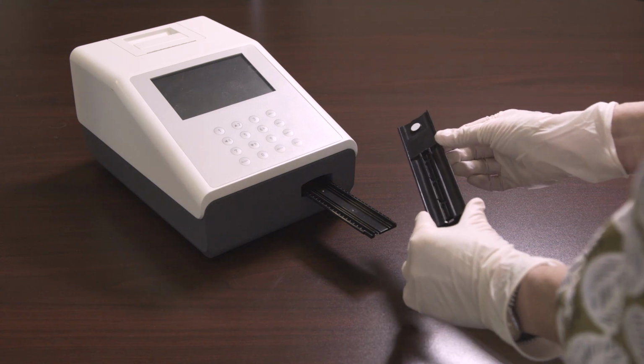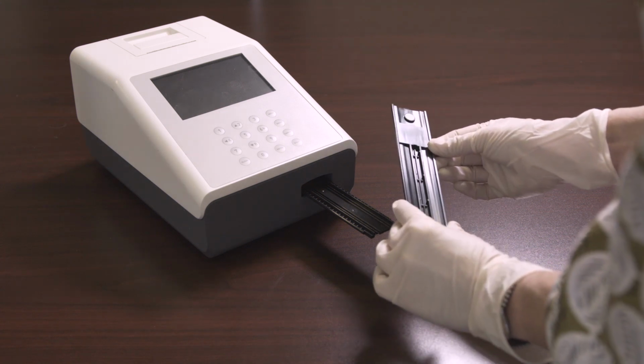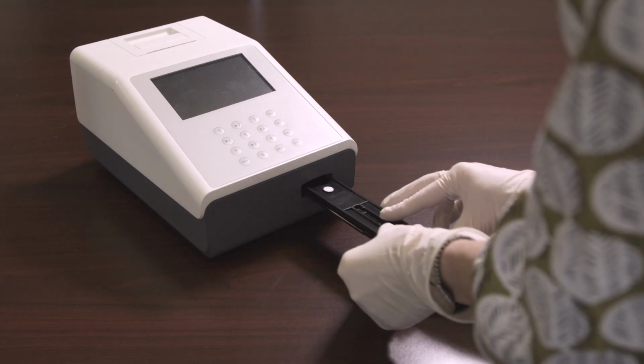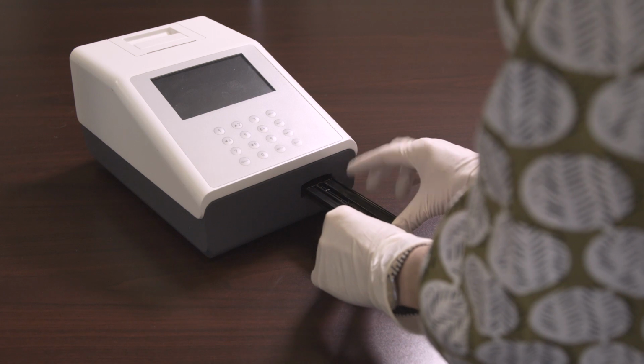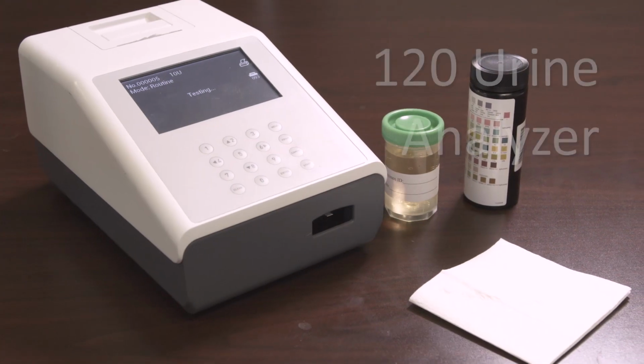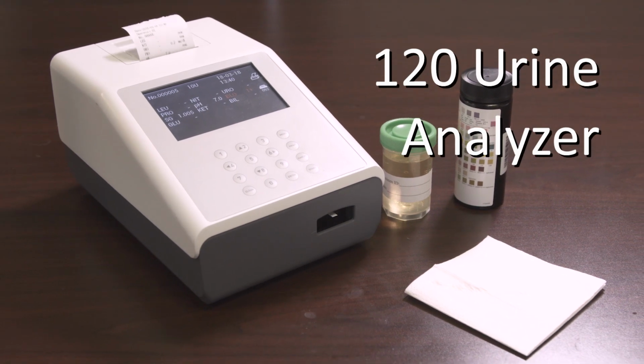Make sure to examine the white calibration circle to ensure that there are no nicks or dirt present. Place the strip holder back on the strip holder mount with the white calibration circle facing up and positioned towards the analyzer. This concludes the operational video for the 120 urine analyzer.